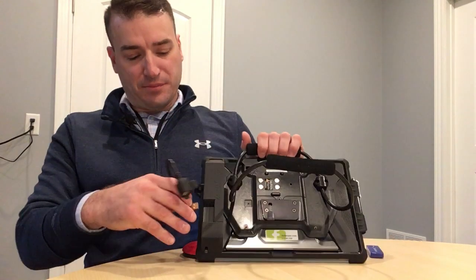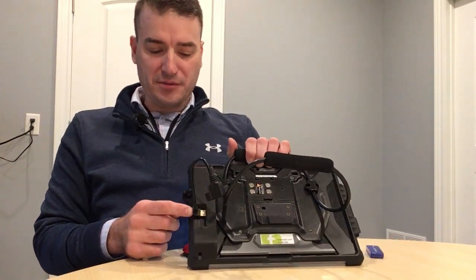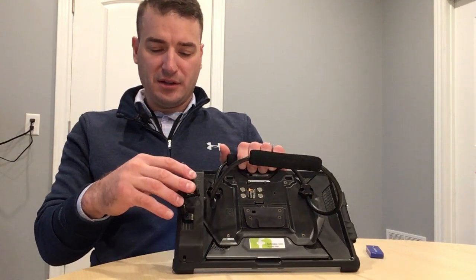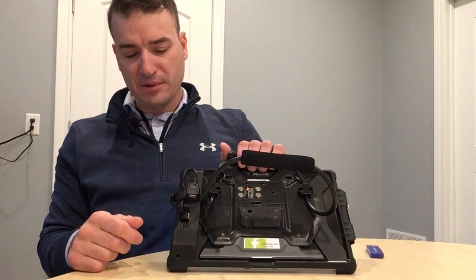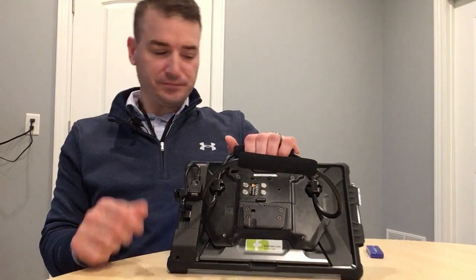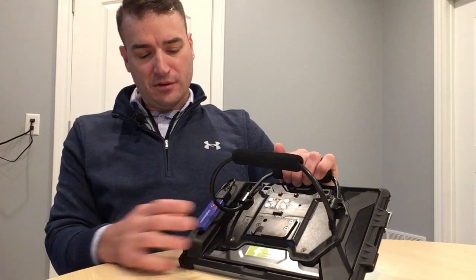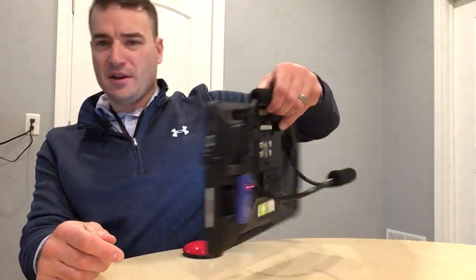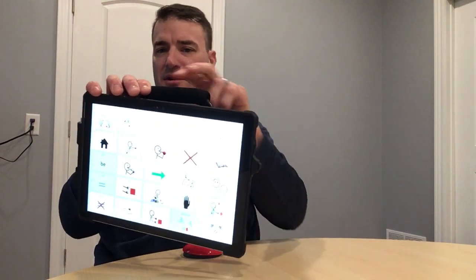So what I'll do is plug this port relocator into one of our USB ports, and then I'll clip it onto the ADAPTA module — you can hear it snap into place — and then I can install my switch dongle, and with that in place, you can tell there's nothing sticking out any longer to be broken.